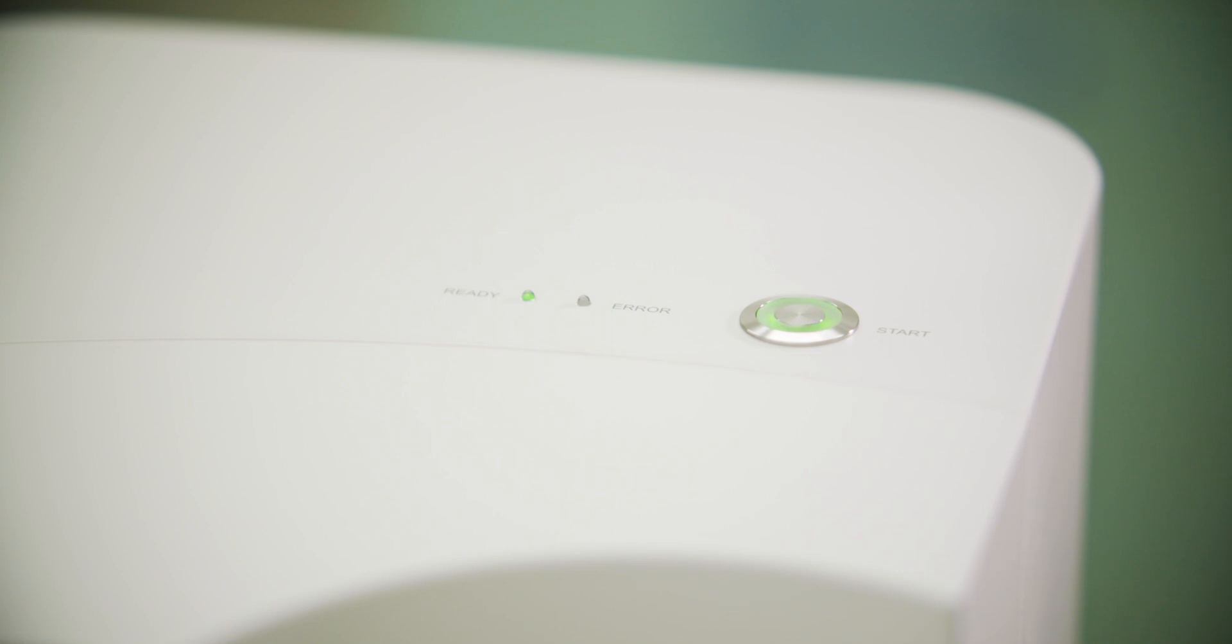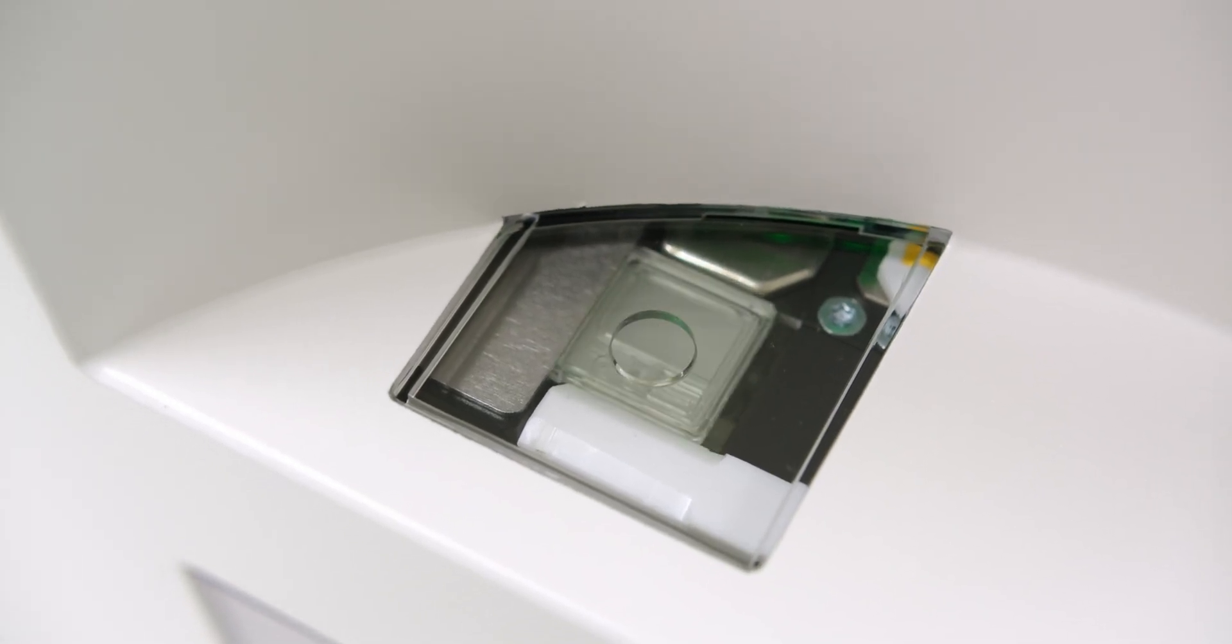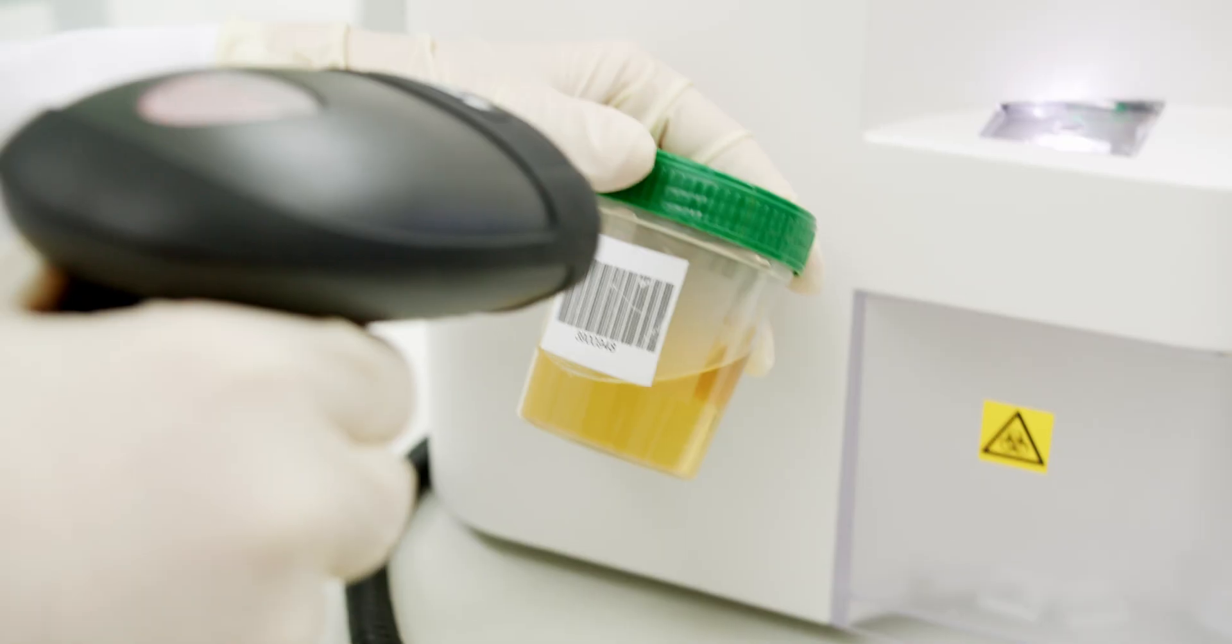After automatically loading the cuvette and entering sample and patient data, the urine sample should be mixed well by gently inverting it.